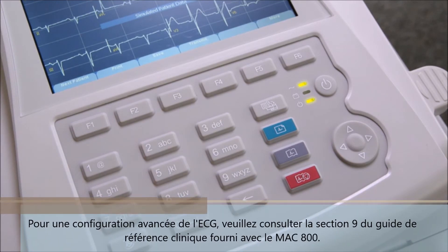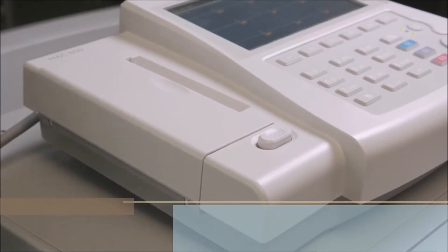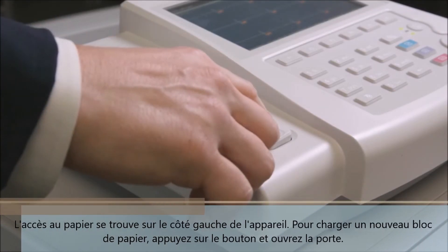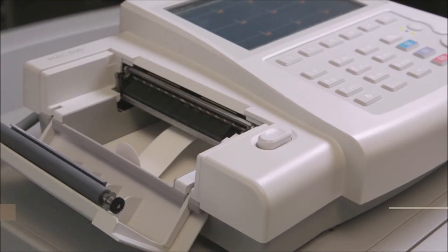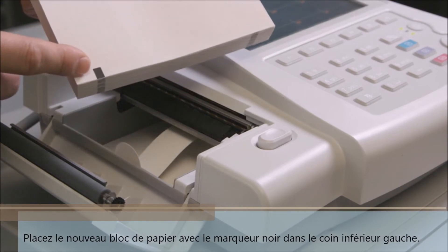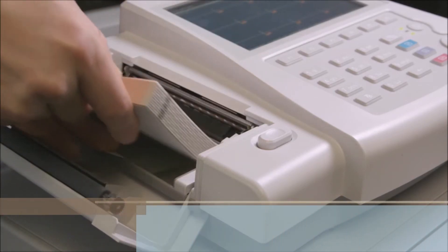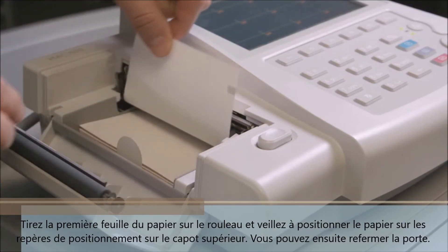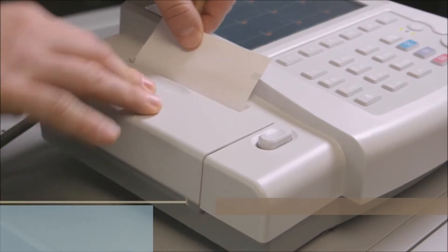For advanced resting EKG setup, please see Section 9 in the clinical reference guide supplied with the MAC 800. The paper access door runs along the left side of the unit. To load a new paper pack, press down the tray release button and open the door. Pull the paper lift tab forward and place the new pad of paper with the black marker in the lower left corner. Fold out the first sheet of paper to the right, taking care to position the paper on the positioning marks on the top cover, then close the door until it latches into place.